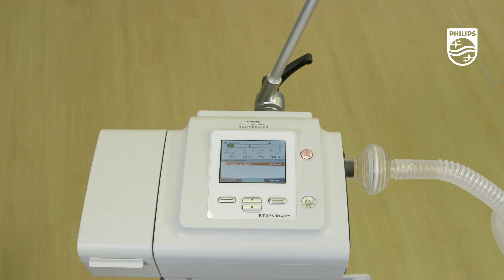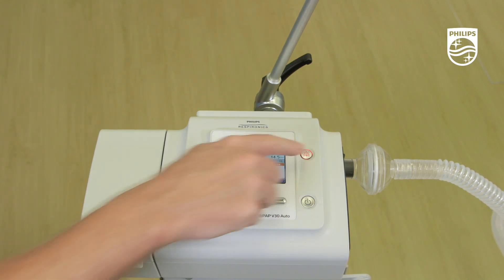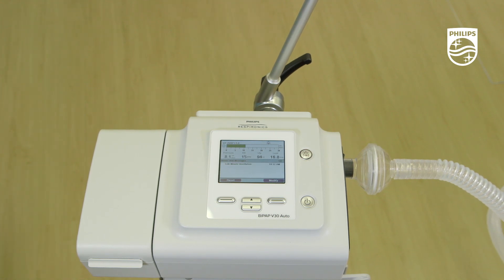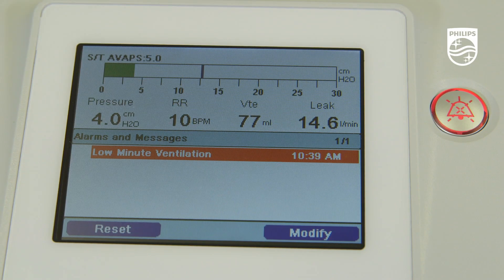When an alarm is active, the clinician can silence the alarm for 60 seconds by pressing the alarm indicator and audio pause button. If the cause of the alarm is not corrected during that time, it will continue to sound until corrected or until there is an additional press of the alarm indicator and audio pause button to add 60 seconds.